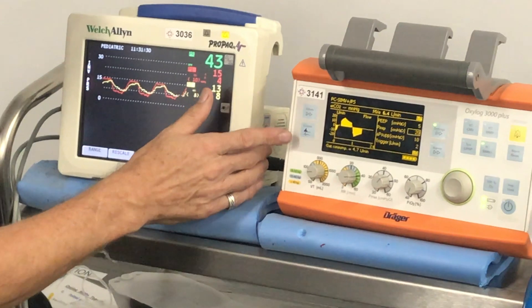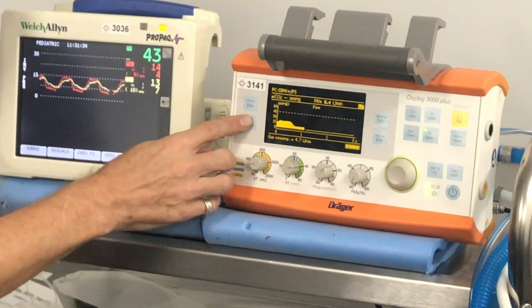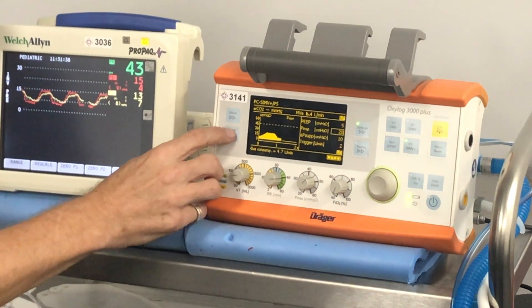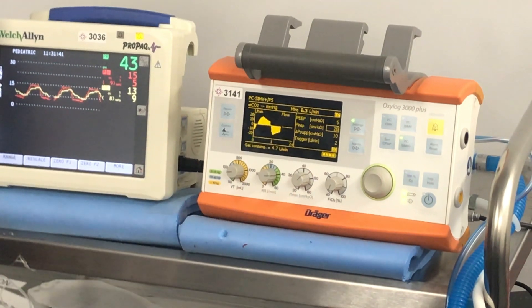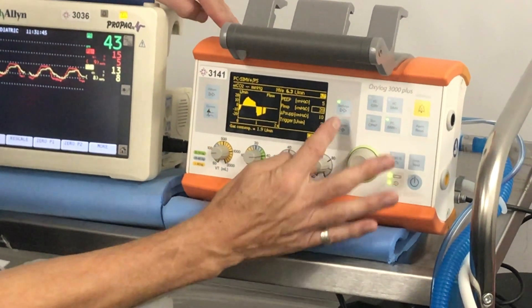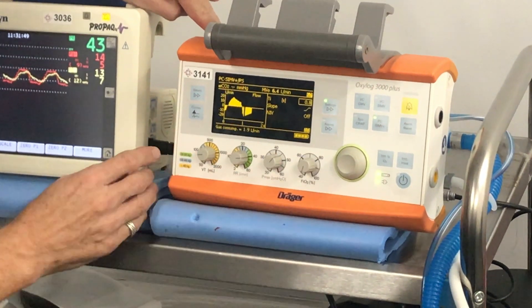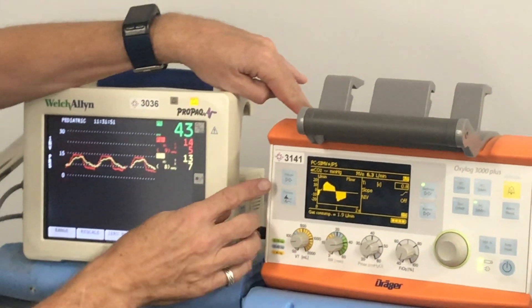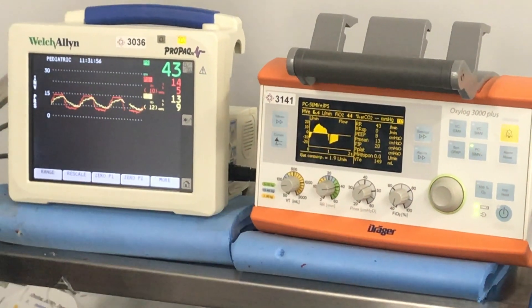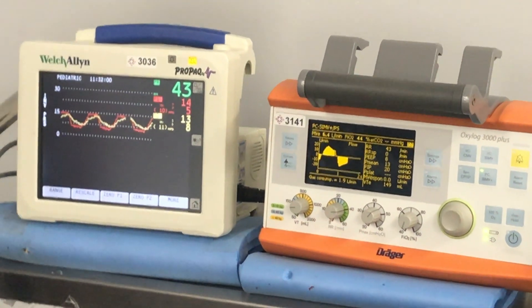When using these, you can have it set in various ways — you can have the pressure curves across the whole screen, or half and half, and choose how the curves are set up. On this side it shows your parameters: we've got 20 on 5 with an I-time of 0.8, which are the manufacturer's settings. When ventilating, I tend to go to the values on page 7 so I've got all the numbers I need without having to flick through.